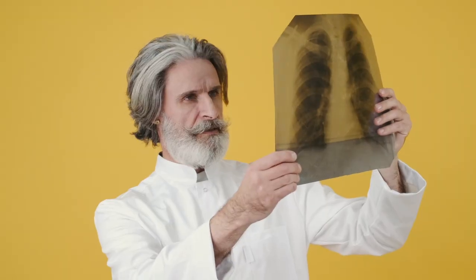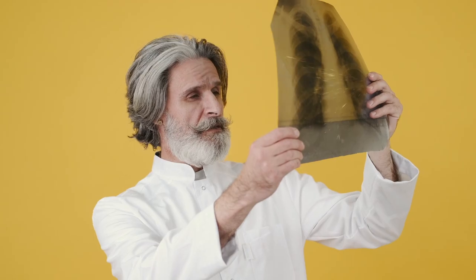Hi everyone, I'm Jack, a radiology trainee based in London. Chest x-rays are the commonest imaging exam performed and they're extremely useful in emergency situations. Therefore, interpreting chest x-rays is a key skill for doctors. Today I'll take you through how to interpret chest x-rays.